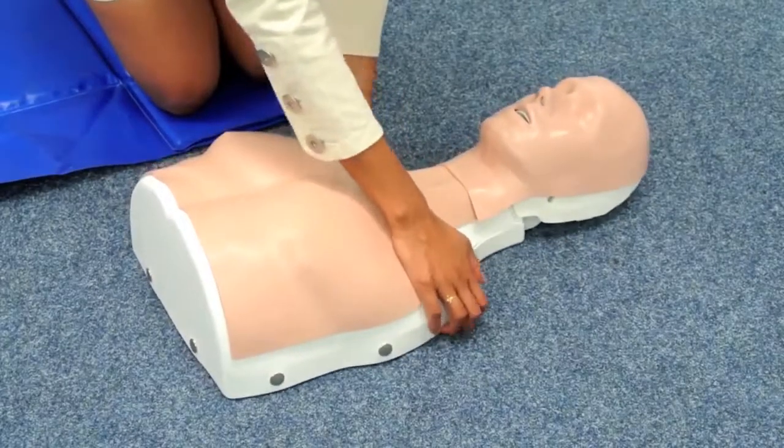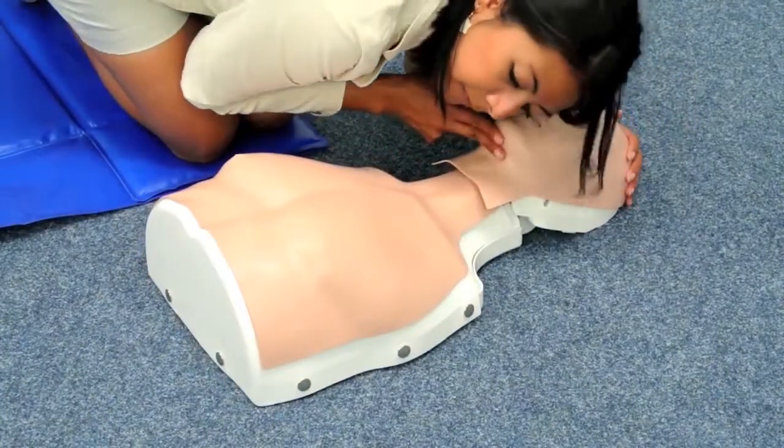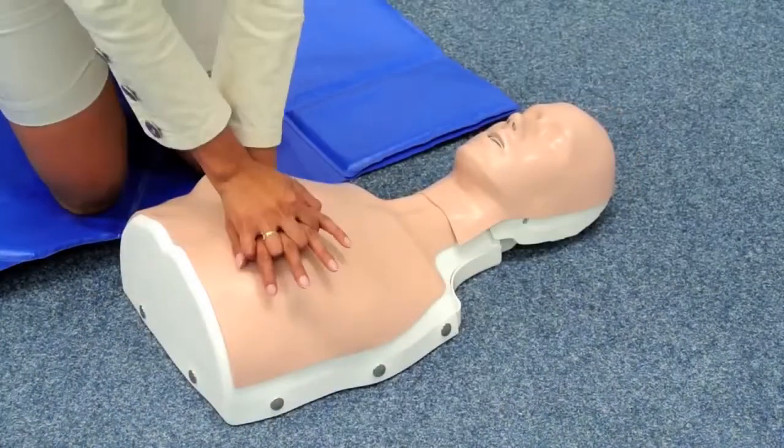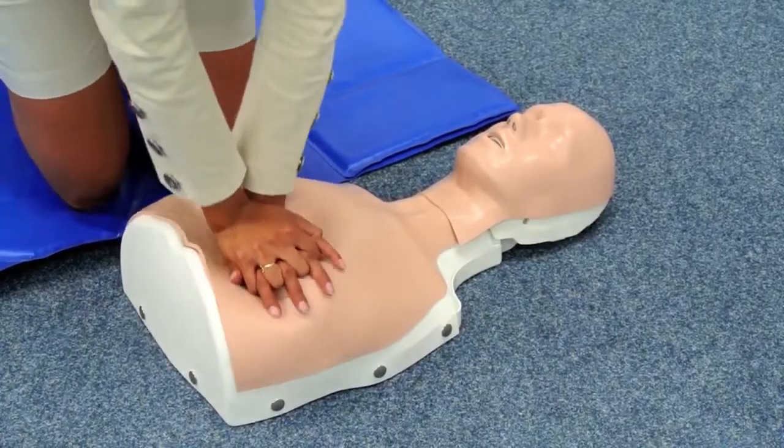With Basic Billy, you can teach basic CPR, like chest compression and mouth-to-mouth ventilation.